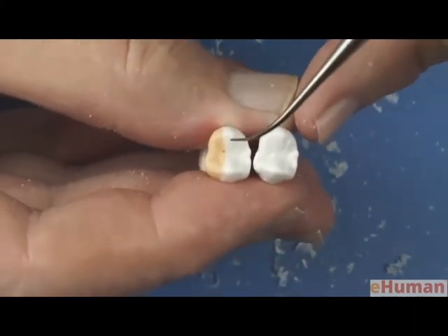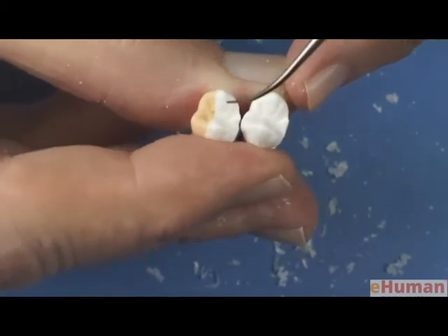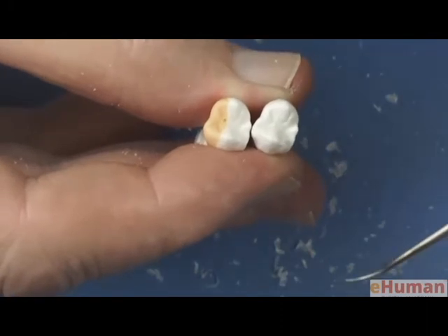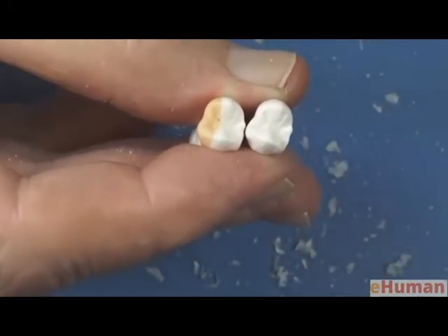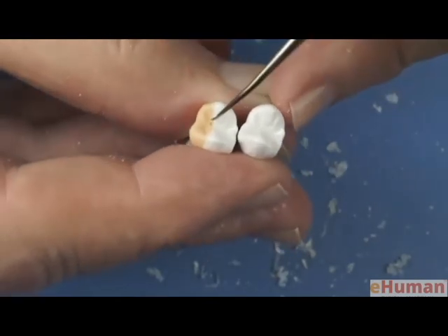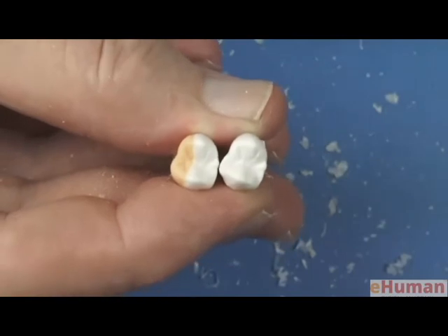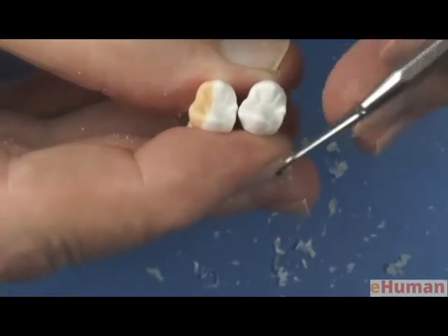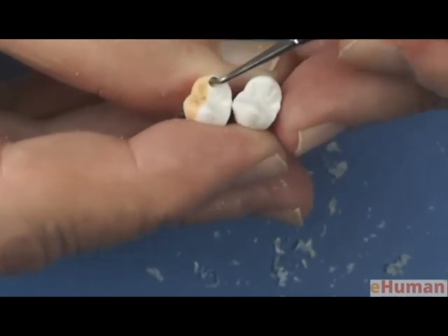I have an air bubble. You notice that little dark spot? That's a little air bubble where I didn't coalesce two increments of wax. So again, take the little sharp explorer-like tip and heat that up, and then just go down in that area and very quickly just touch the wax and it will flow it together for you very nicely. Then you can go back and you can recarve that to smooth it with your little cone-shaped instrument.